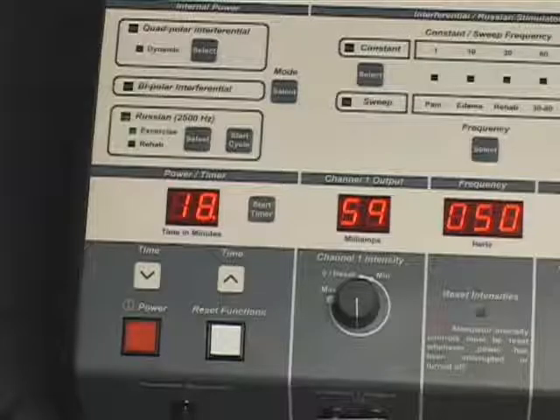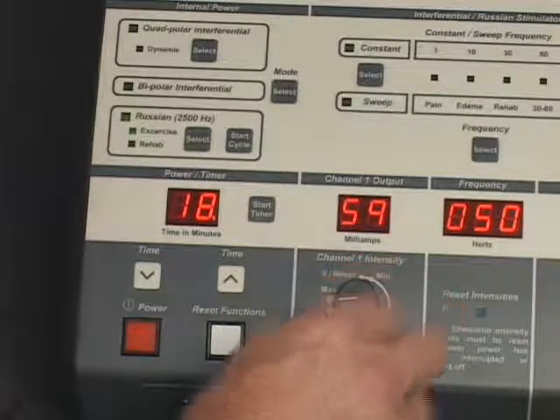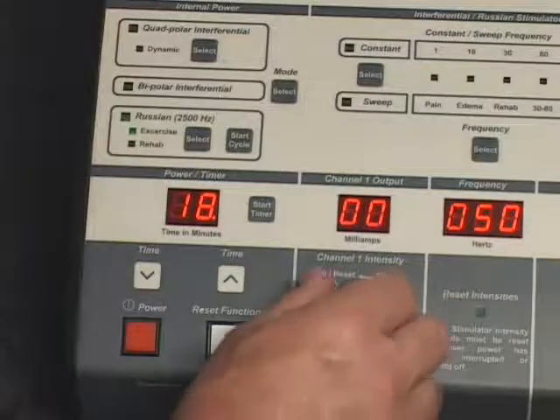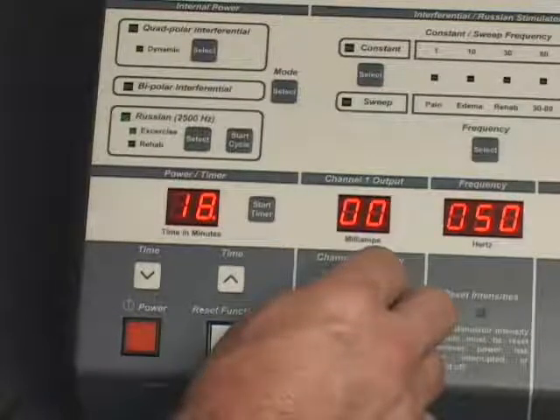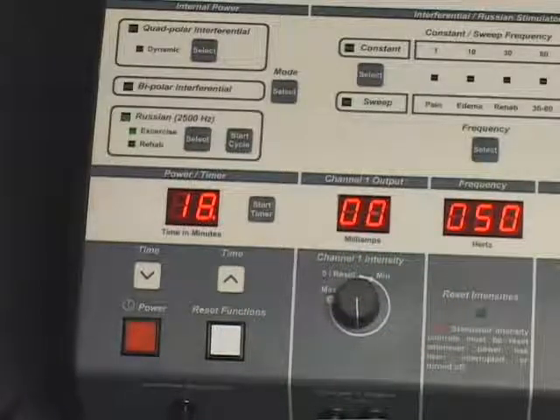Intensity can be reduced during treatment in the exercise mode or rehabilitation mode. If an attempt is made to increase the intensity setting during treatment in the exercise mode or rehabilitation mode, the intensity display will flash and the Start Cycle control will become inoperable. The intensity display will continue to flash and the Start Cycle control will remain inoperable until the intensity is reduced to the level originally selected.